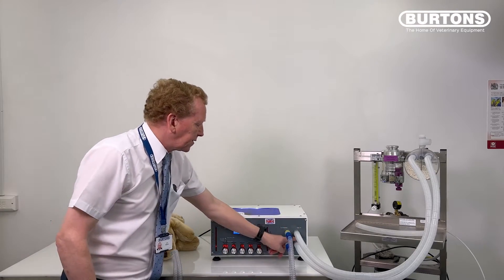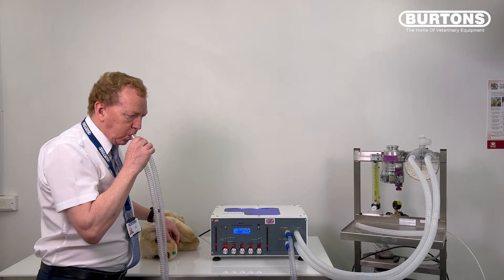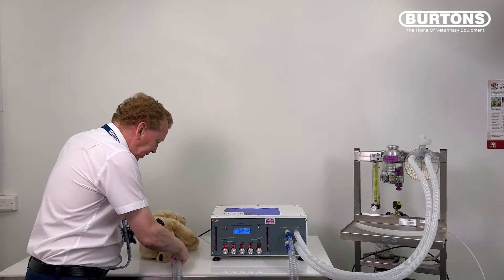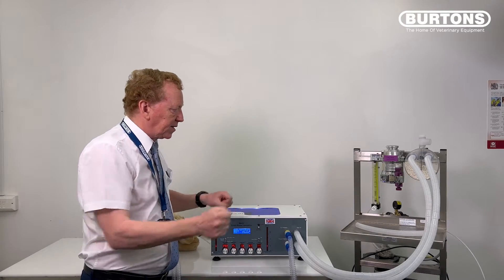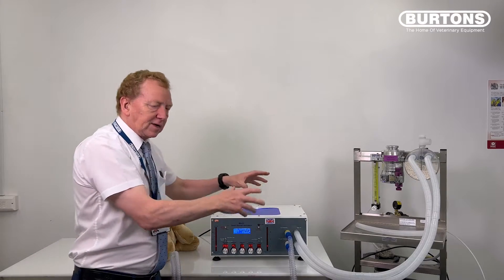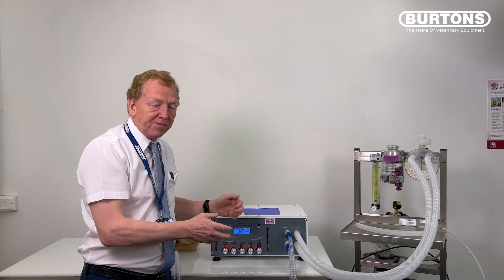That's connected to that and that's connected to that. In this condition, as I mentioned before, I can breathe and I just breathe through those long tubes. Now, if you've seen my videos on dead space, you'll understand that that constitutes no dead space. This is the dead space. This is acting as circuit volume, which has very little implication because we're ventilating.